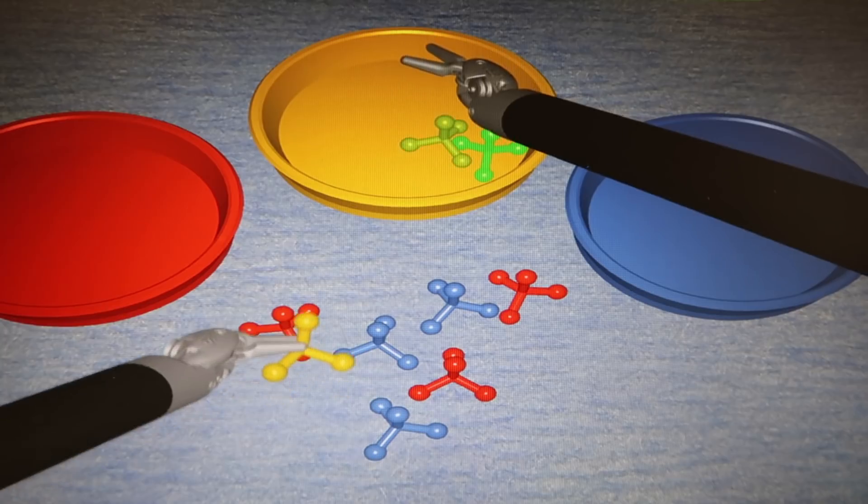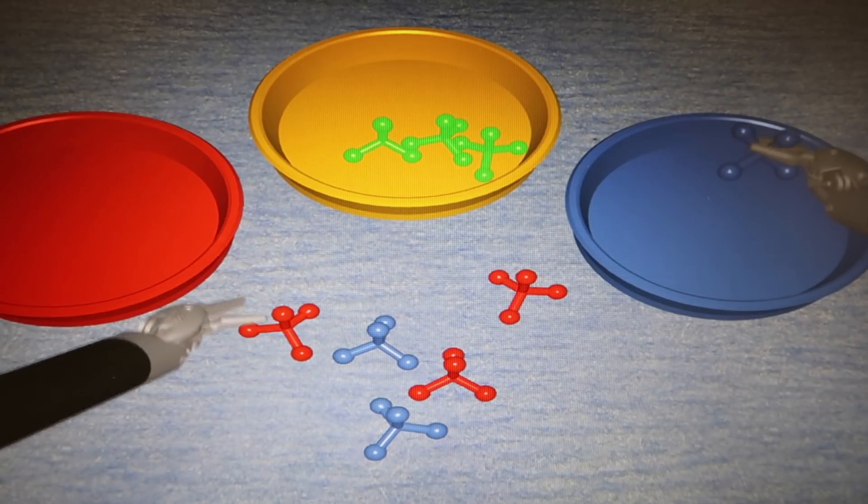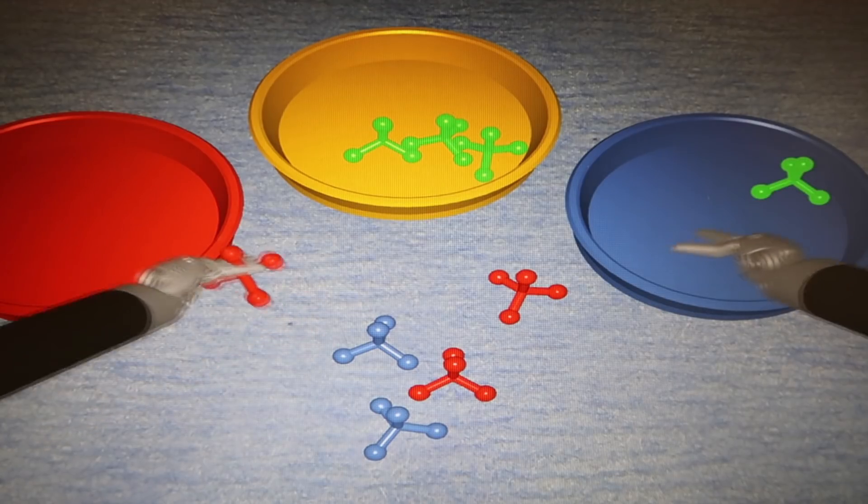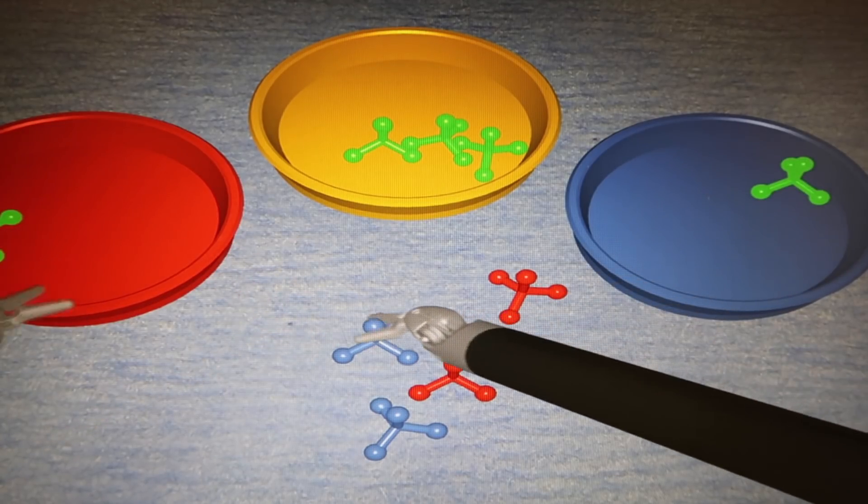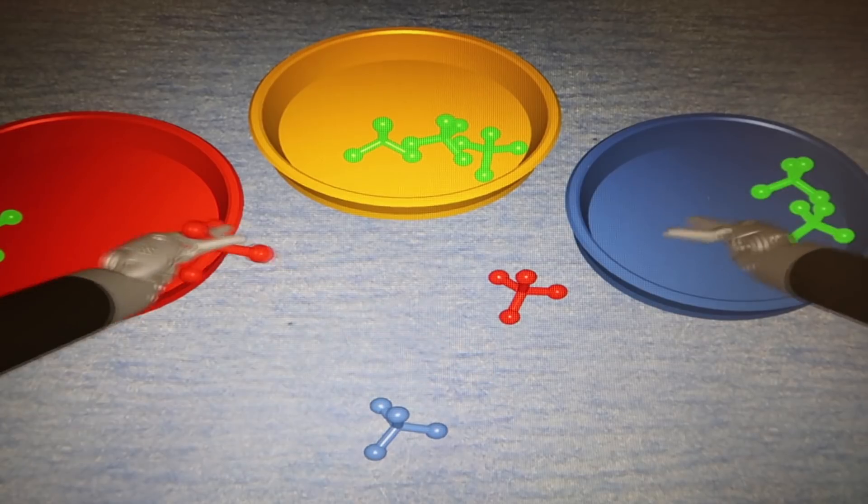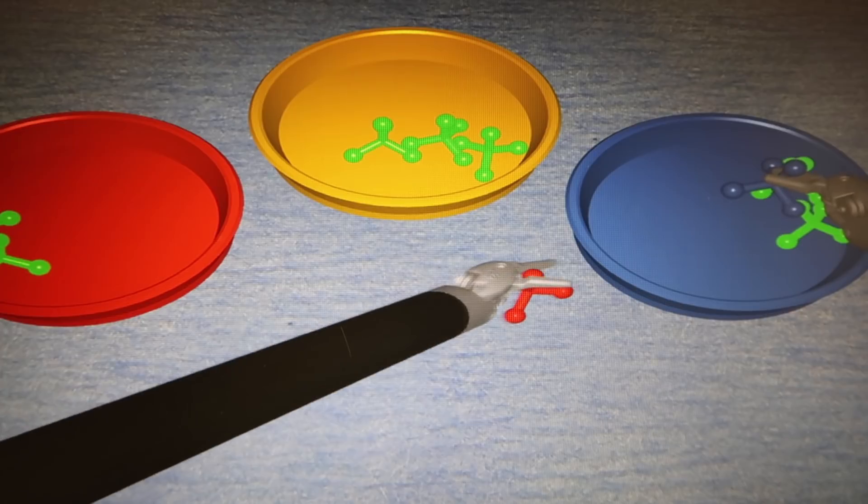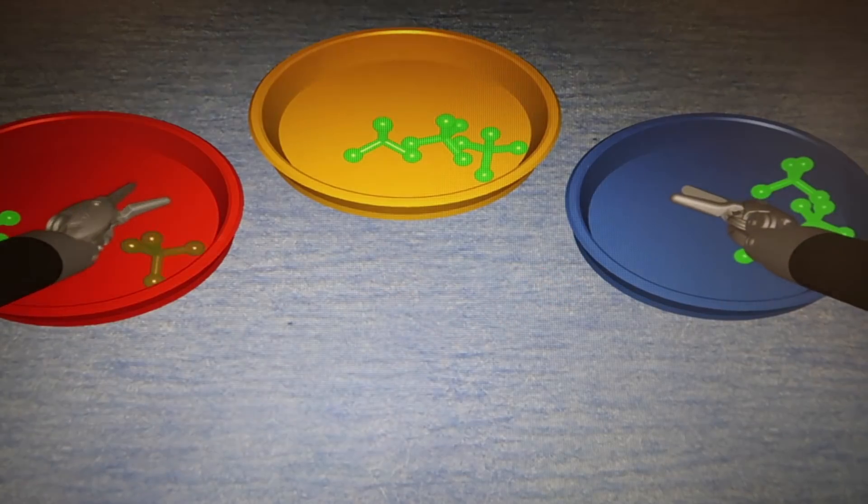In this one, all you have to do is pick up these different colored toys and drop them in the color-coded bins like you see me doing here. It's kind of fun and it's a way to get better at the skills and moving your hands without really having to even think all that much about it.